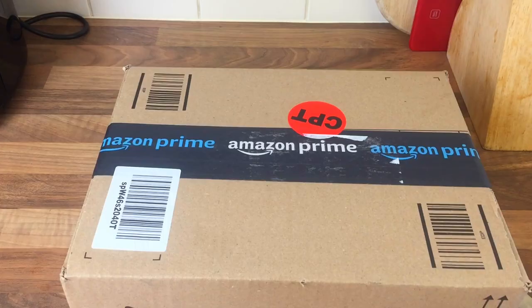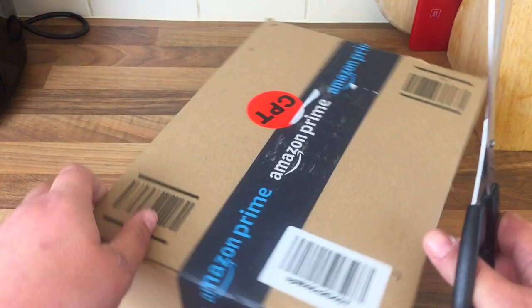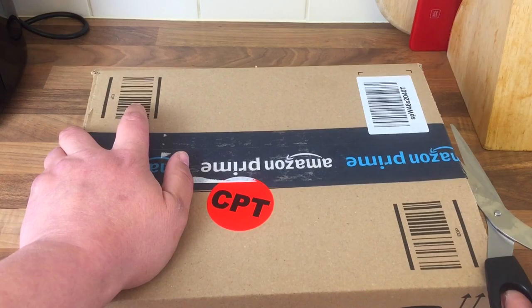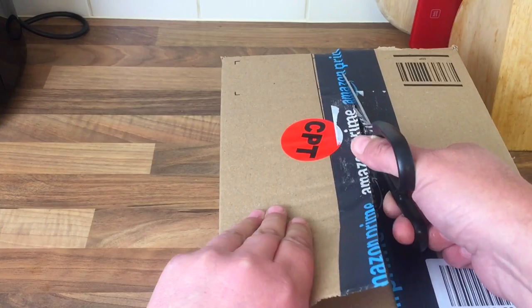I'm hoping this video might help some of you, even if you just suffer from arthritis. I think these are really useful — they help me a lot with my pain. I bought this from Amazon and it was about £15. This is my third one, that's how good they are. They last about five years, so they last quite a long time.